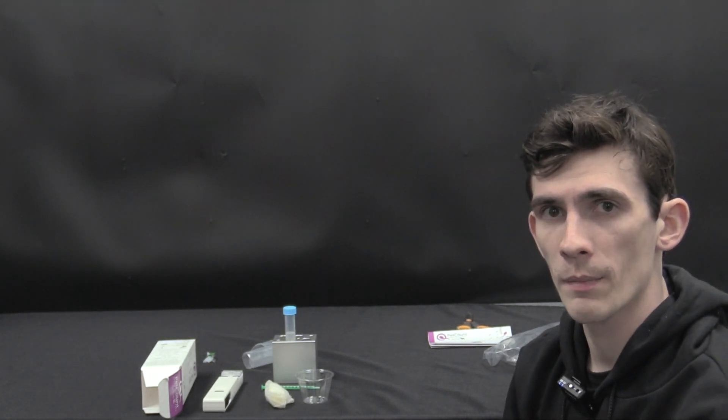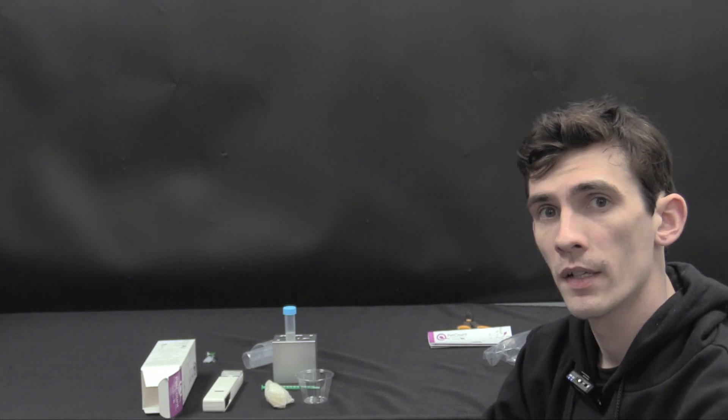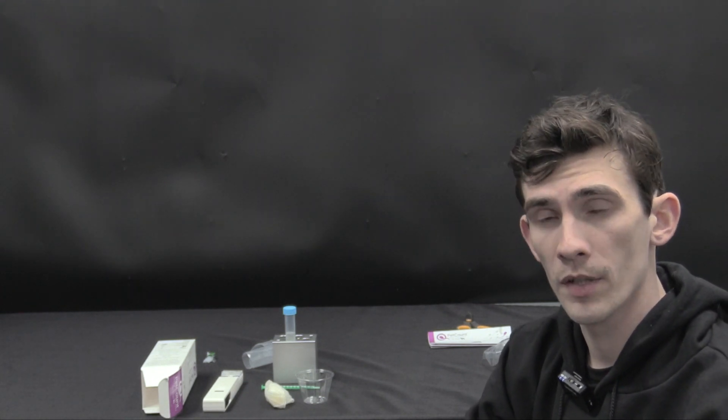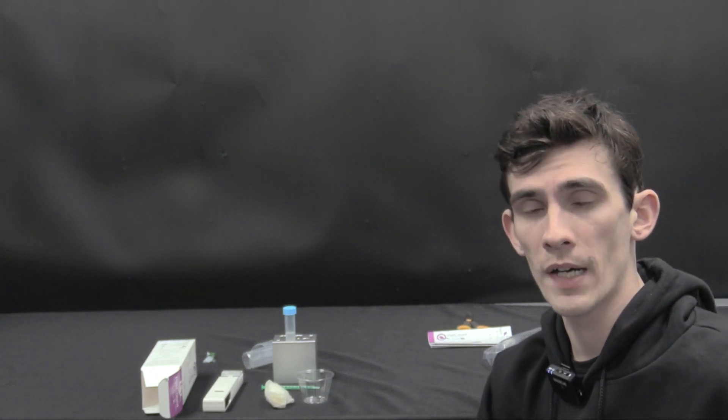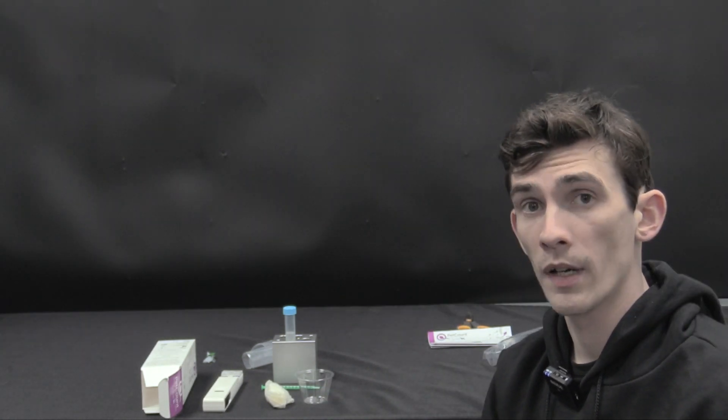In conclusion the pet count cuts away all the clutter checking only for the best sperms, the PMSCs, does not require any calculation or interpretation or analyzers or other expensive equipment. All you need to buy is the device and bring your dog and we are on our way to checking your stud's semen quality.